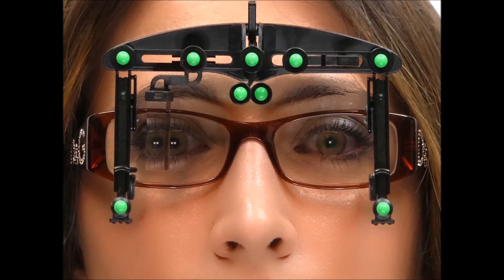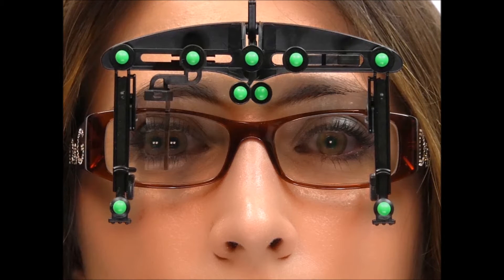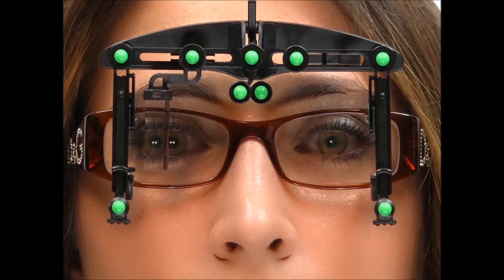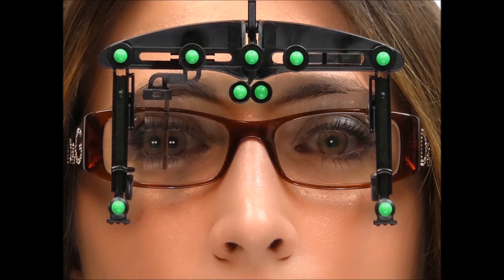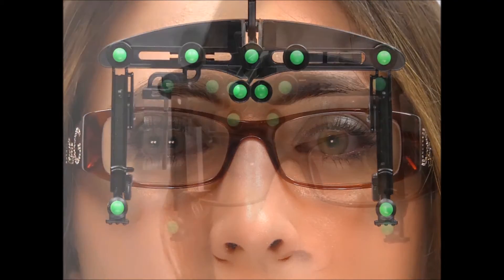The EY Stick captures personalized frame fit measurements, taking into account how the frame sits on a person's face.